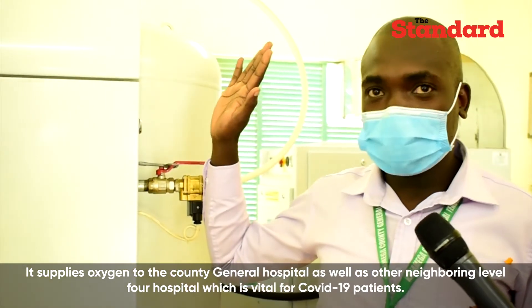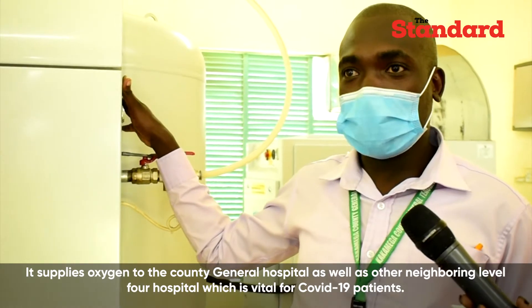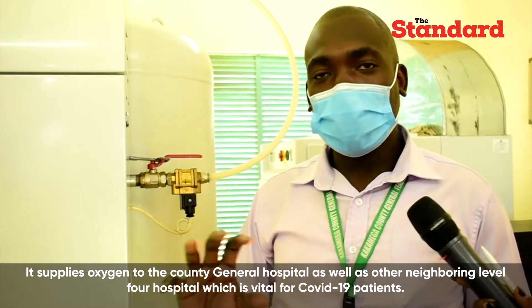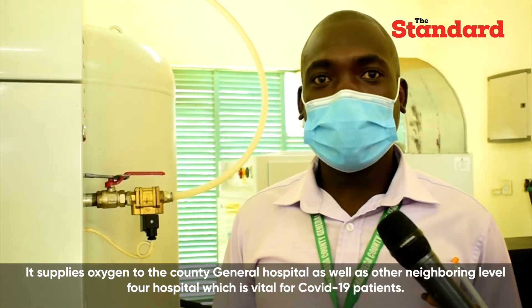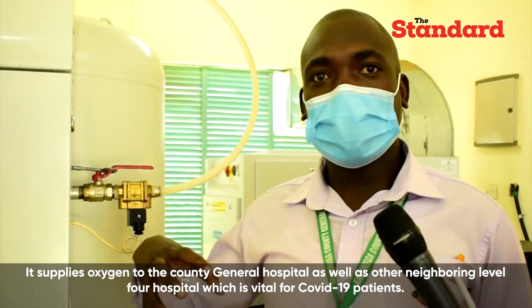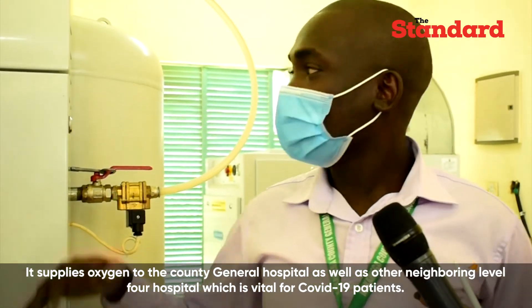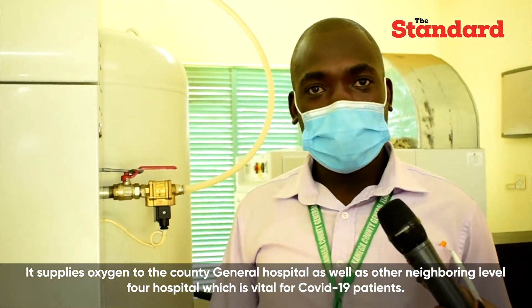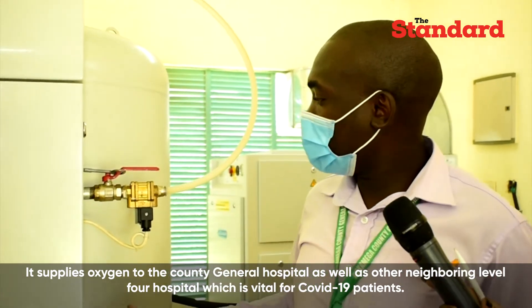From that point the air comes to what we call zeolites. This is a generator where we have zeolites, and zeolites have high affinity for all other gases — that's the CO2, the inert gases, all those other gases. Once this air, which is only about 21% oxygen, passes through, the zeolite absorbs all these other gases and in the process increases the percentage of oxygen in that air.